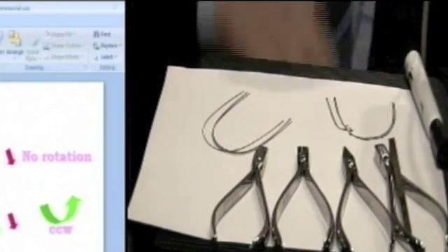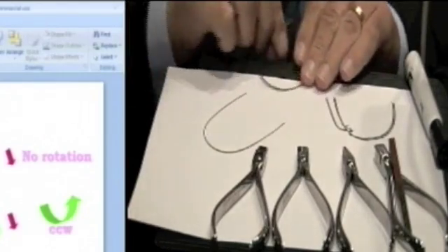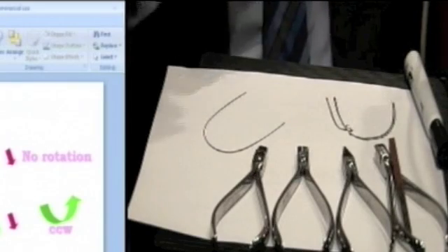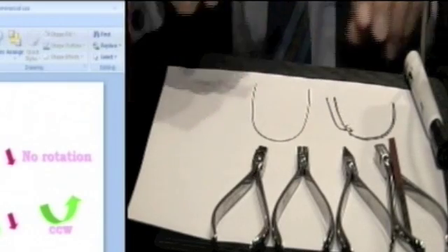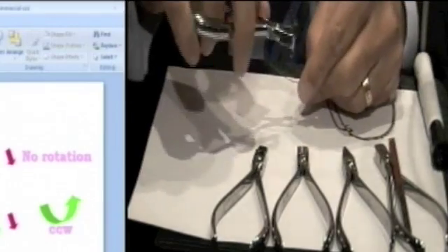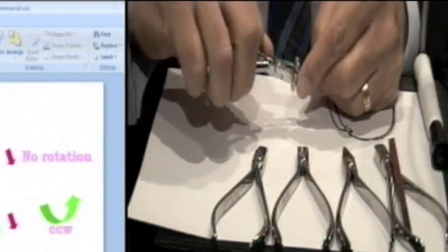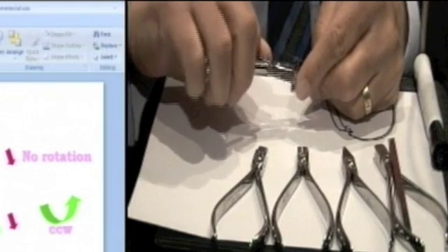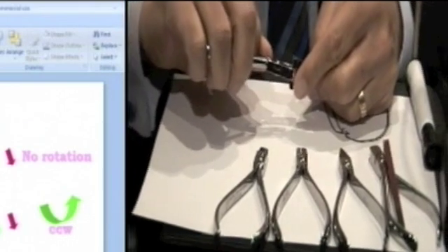Now I'll just show you that first bend. If you come in with your hammerhead plier and you press it, it will either do an inset or an offset.